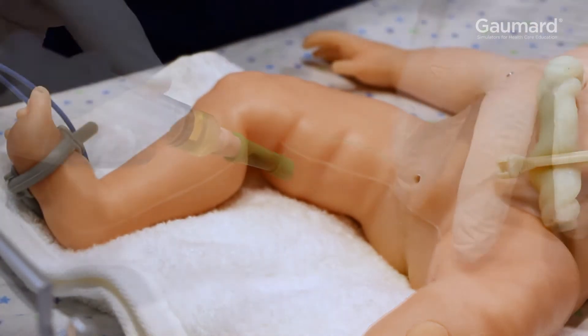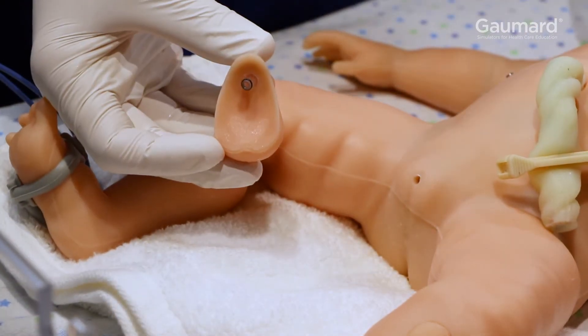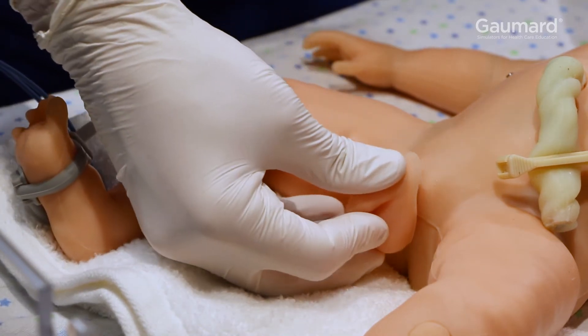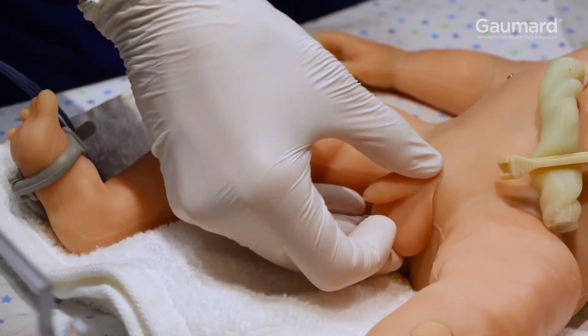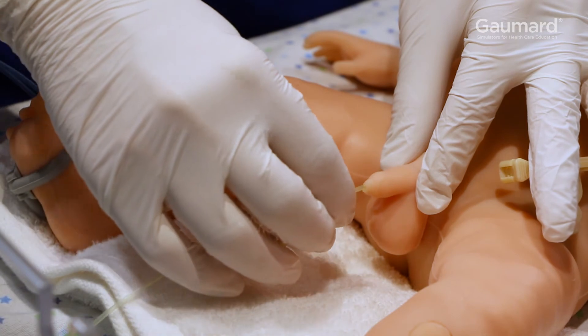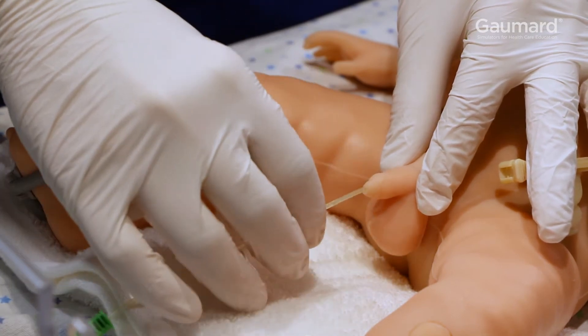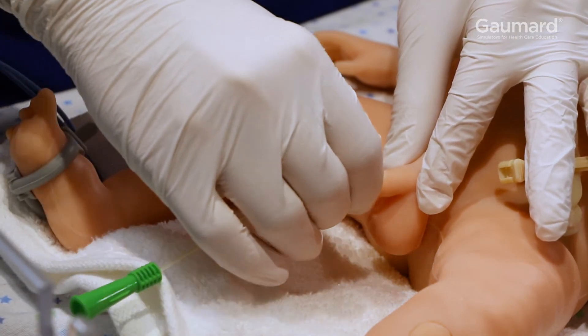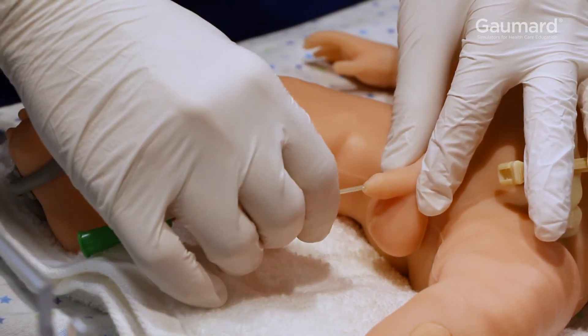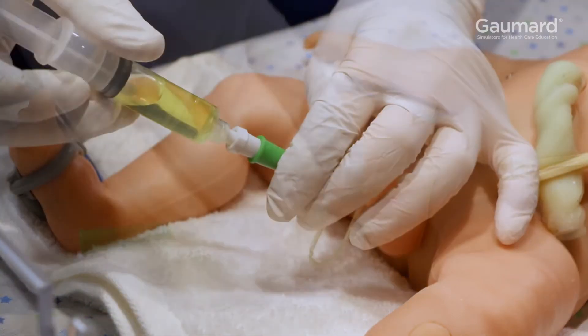To install the male genitalia, insert the urethra extension from the back of the male genitalia into the urethra on Supertory. Repeat the same process to fill the urethra with urine while using the male genitalia.